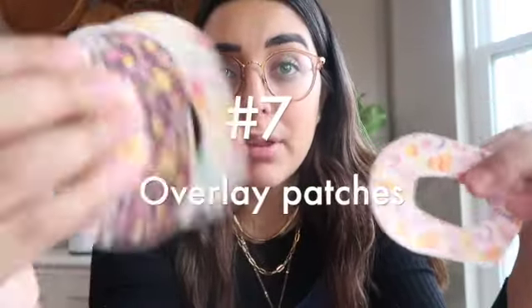Lastly, this product we use all the time. The product makes diabetes so much more fun for the girls, especially in the summer when they go to the pool — the girls are super active, they're kids. Those Dexcoms and pumps come off all the time, get knocked off, and when we go in the water the adhesive unsticks. We have always used a company called Pump Peels, which are adhesive overlays for the Dexcom and the pump. They make it so much fun because they have the cutest designs — the girls get to pick cute designs for their gadgets. They have Halloween ones for the pods, ones for the Dexcoms, and they also have them for Freestyle Libre, Medtronic, and all sorts of pumps and CGMs. I do have a discount code for them — use code A-team to get it even cheaper.